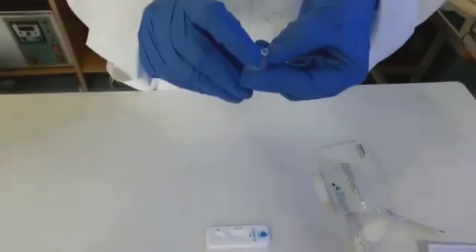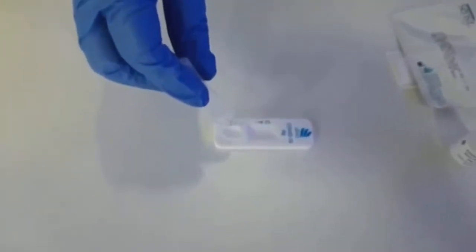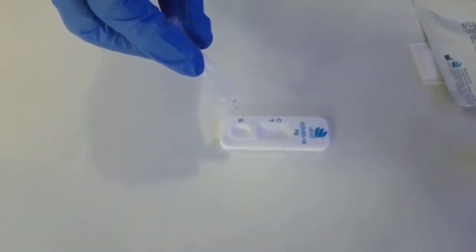Add two drops of the specimen into the sample well. Wait for about 20 minutes and read the result.